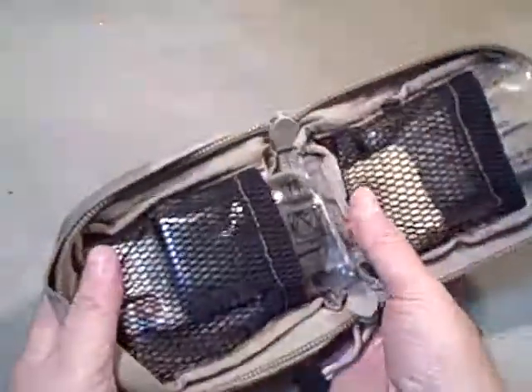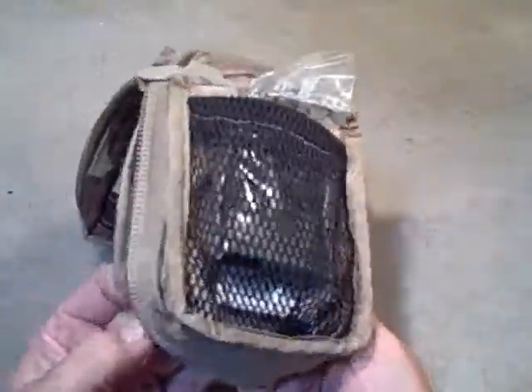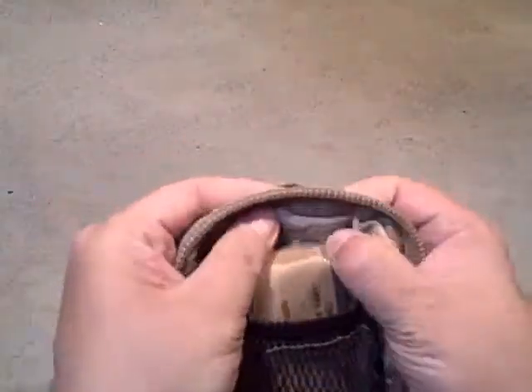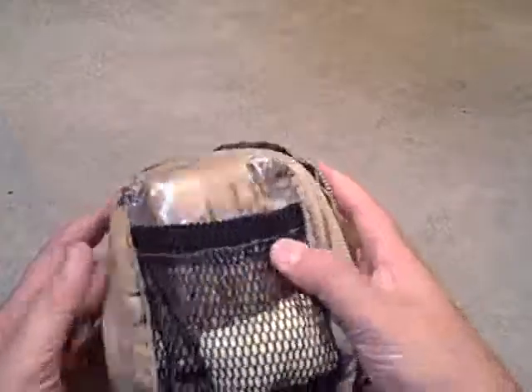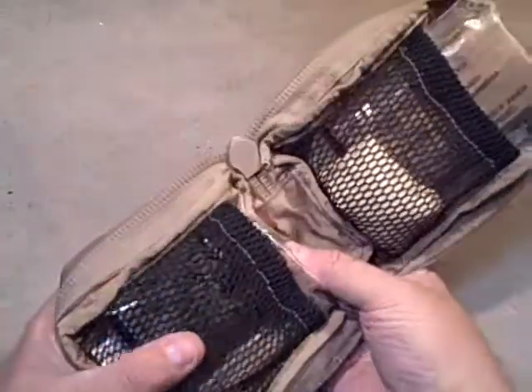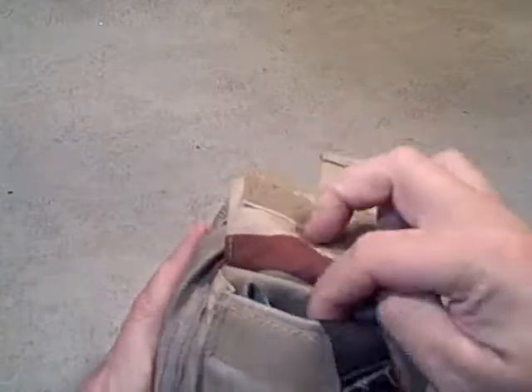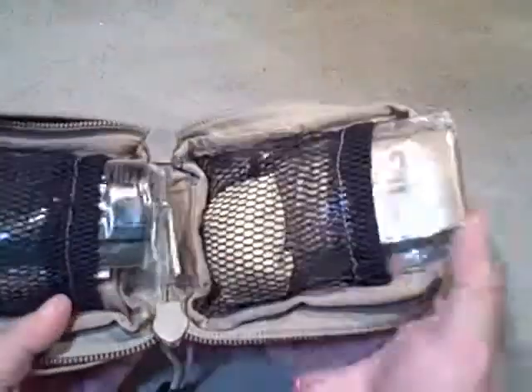Digging inside. I should mention I bought this kit as-is and I'm reviewing it as-is. I bought it at a gun show — I think it was about $30 — which may be a little pricey for surplus, but I looked at it and was really impressed with the quality. I didn't mind the contents. A lot of times when you buy a pre-built first aid kit, the stuff inside may or may not be quality or exactly what you want. For me, the only things this kit is really missing are a QuikClot and a tourniquet. I figure I can keep a tourniquet in the outside pocket, and on the inside I'll probably add a QuikClot.